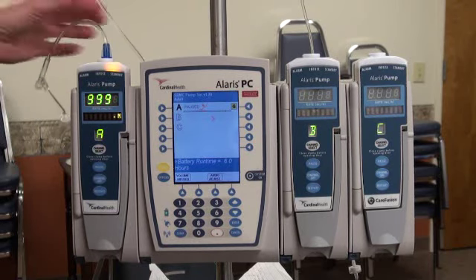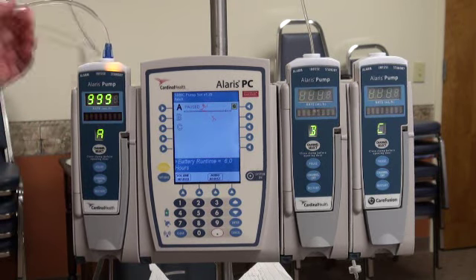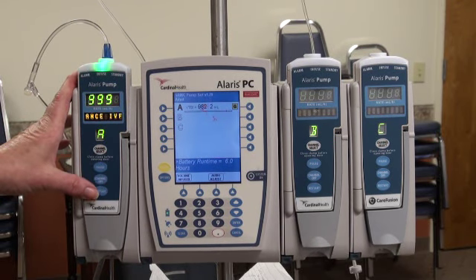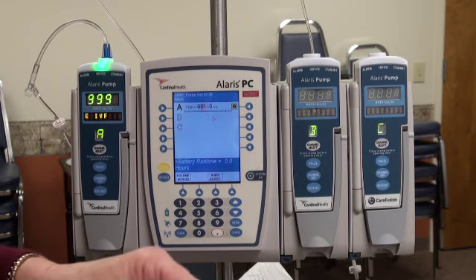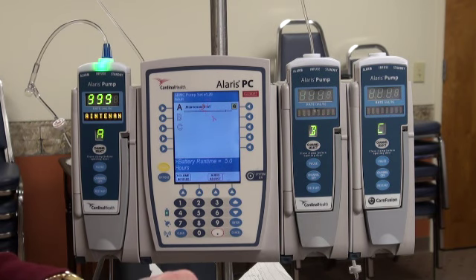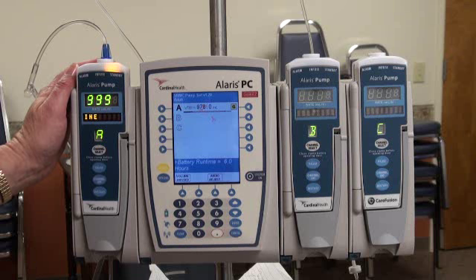Okay, now I'm going to show you different things we can do if your IV channel says occluded on patient side. I'm starting my fluids running. Gone down the road, you're running just fine. The patient's getting the fluids, the rate and the volume, everything's set by the ambulatory care, and all of a sudden it stops flowing. It says checking line.